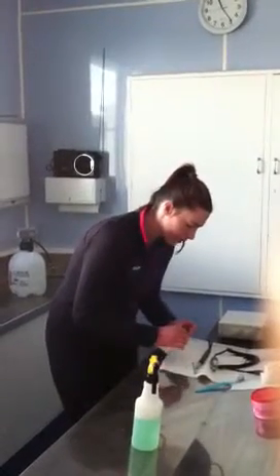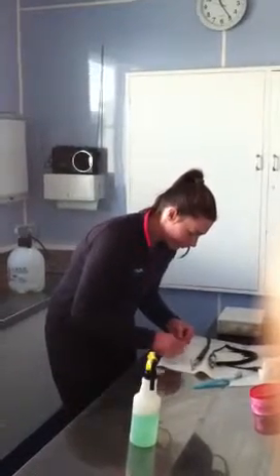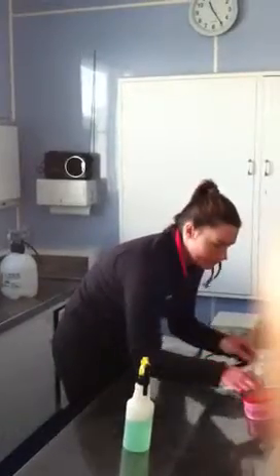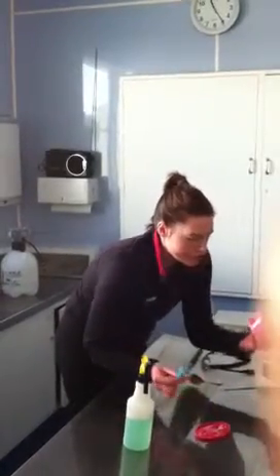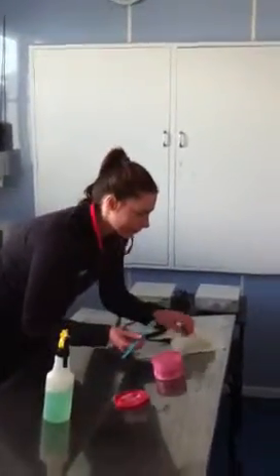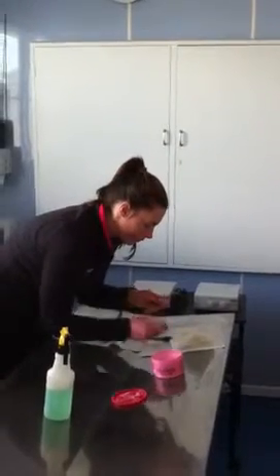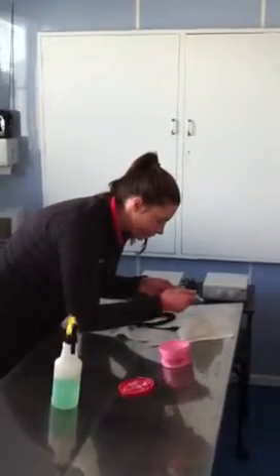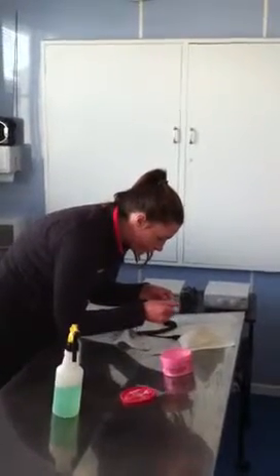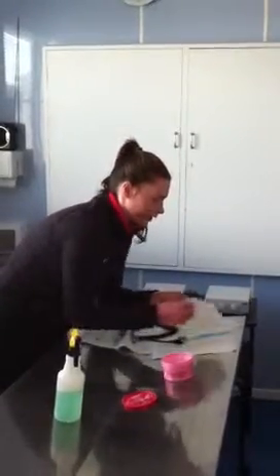Just make sure you don't lose the pieces, and it's just brushed out. You can also use this paste — it's a cleanser — and wipe afterwards.